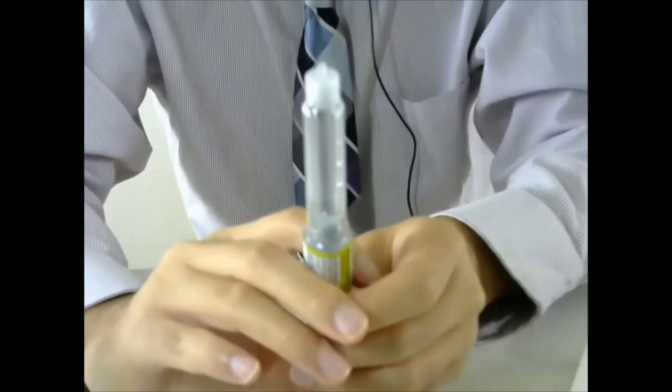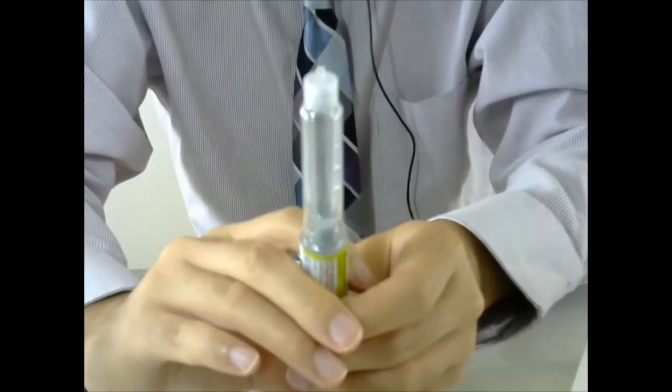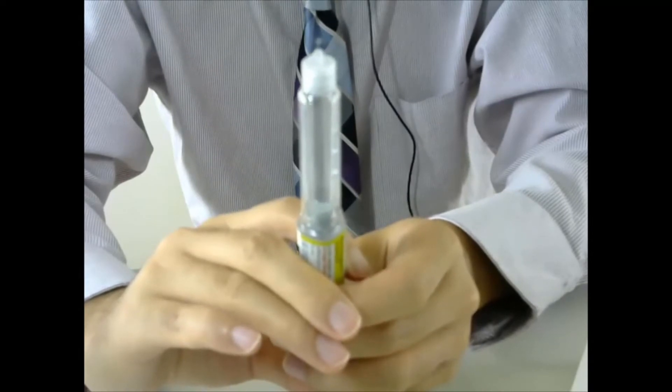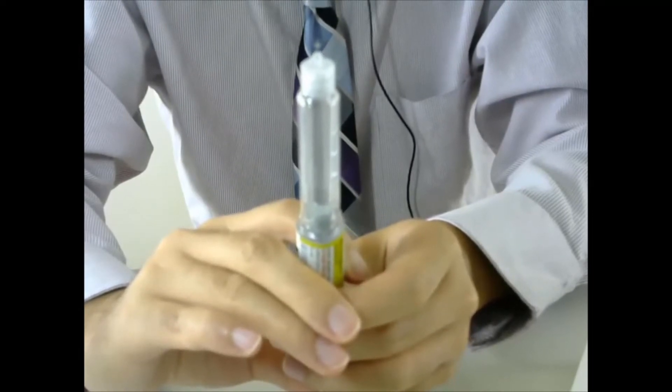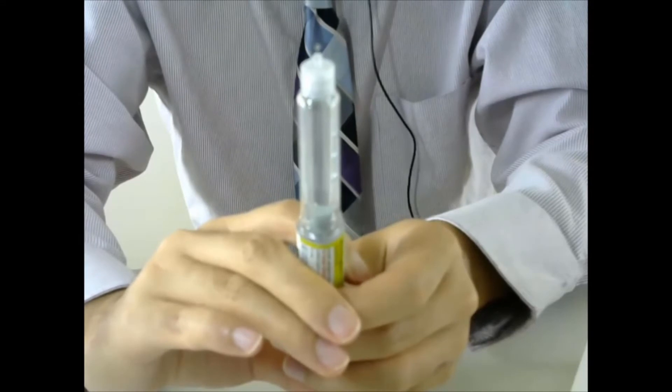Then squeeze the button. You will see there will be liquid coming out, so the gas is squeezed out.